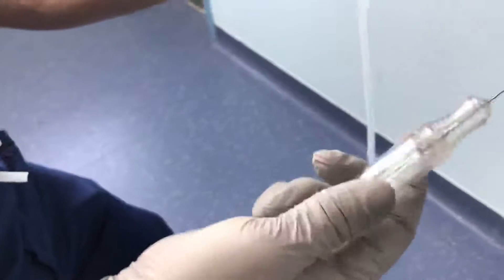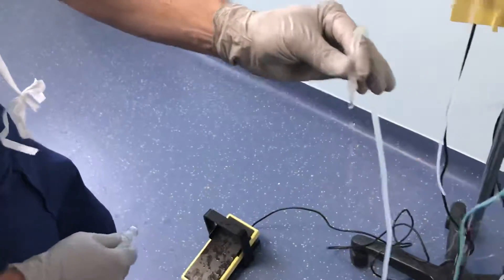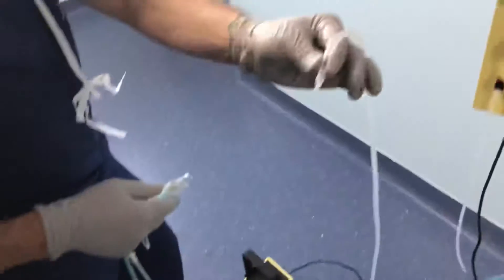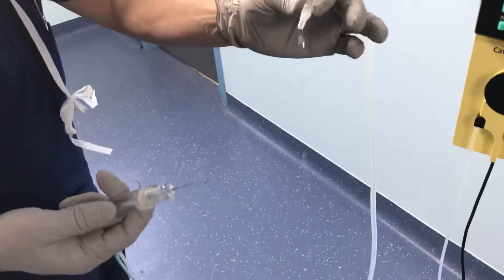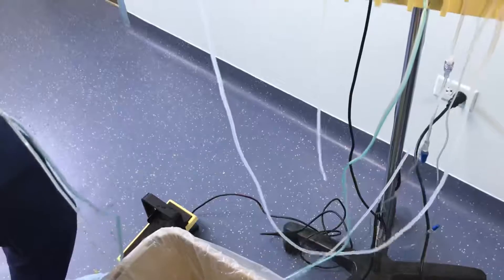That's what this setting's on. When we're all done, we have it constantly irrigating so you don't have to think about keeping your foot pedal on. When you're done with constant irrigation, hit the back end of the pedal — the back end of the pedal turns off the constant irrigation. To go back to constant, push the front — now it's going to constantly irrigate. When it's time to stop irrigation, hit the back end of the pedal with your heel. When it's done, give that away to be flash sterilized or sterilized with heat, and this one here gets thrown away.